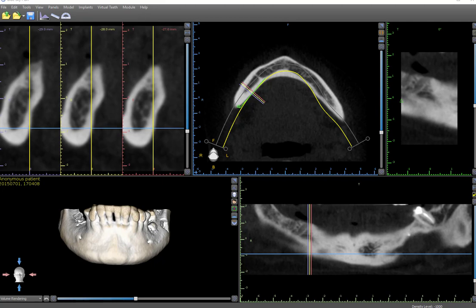If implants cannot be placed into a plan, check that Blue Sky Plan is in the proper mode. The plan contains three operational modes: Viewing, Normal, and Advanced. Viewing mode protects the plan from being modified. Normal mode allows for an easy approach to planning, while Advanced mode opens the program's more detailed functionalities.